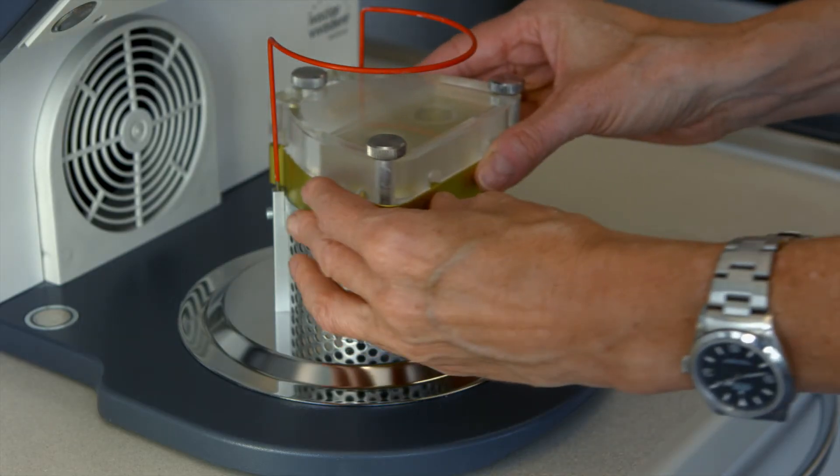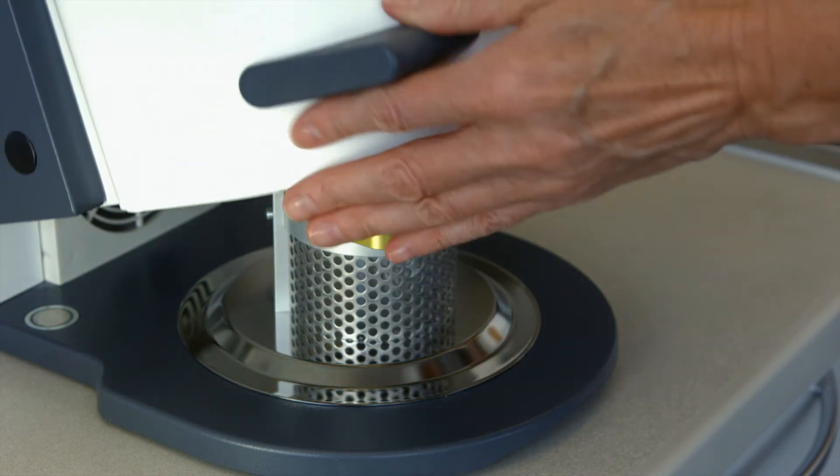Light cure the composite resin with a suitable device, for example, the LumaMat 100.